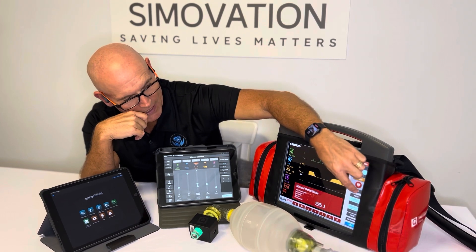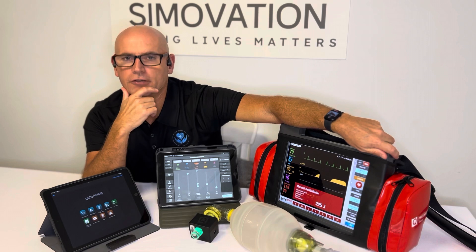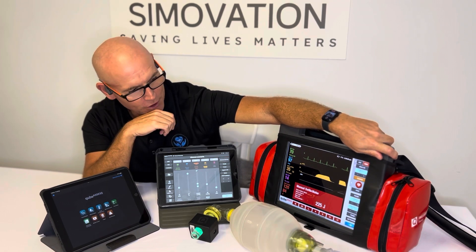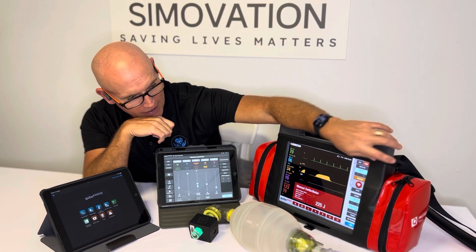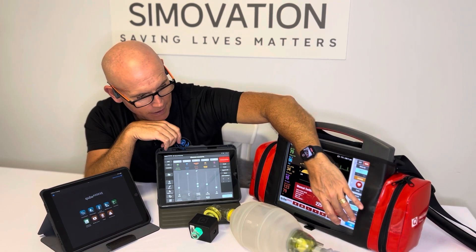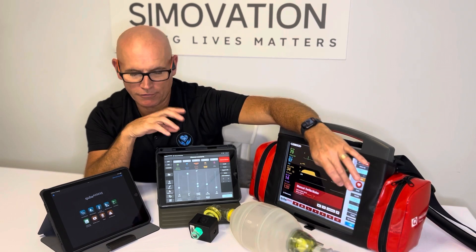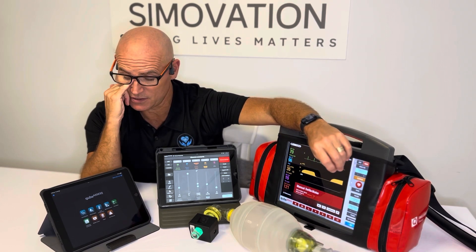Down here we can run pacing, so we can change the current and the frequency to get capture. Further down we even have a metronome, and it gives you a variety of options: 15 to 2, 2 to 15, and 30 to 2.